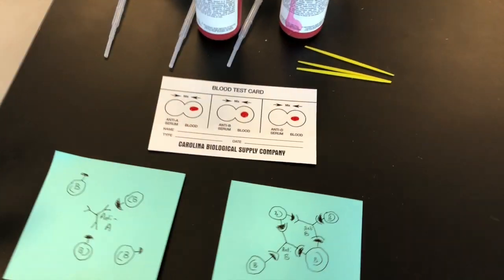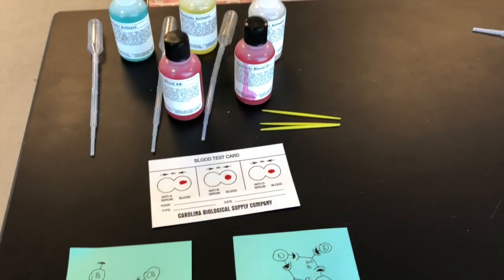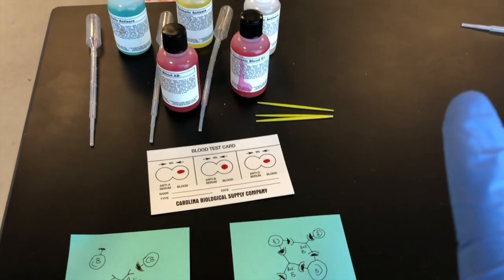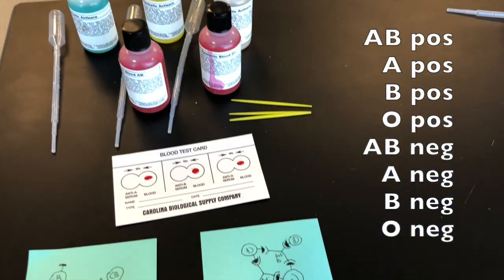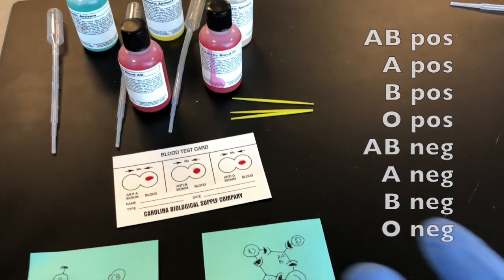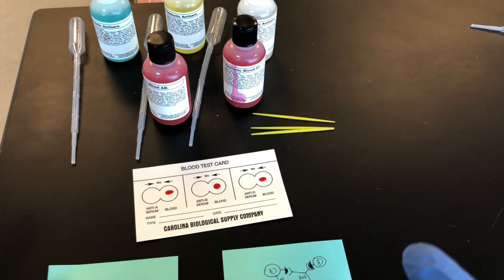We're going to show you the principle of the three laboratory blood tests that we went over. The first thing we're going to talk about is the blood typing systems. As we discussed in class, there's type A, type B, type O antigens, and the anti-D, which is positive or negative. We know that O negative is the universal donor and AB positive is the universal blood recipient.